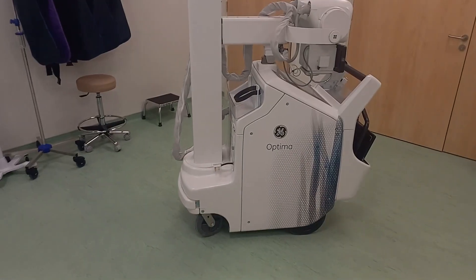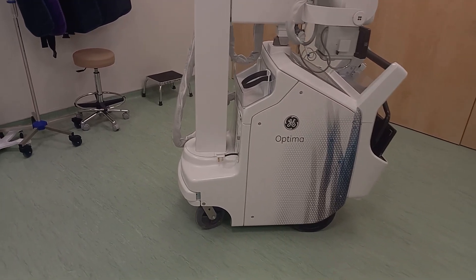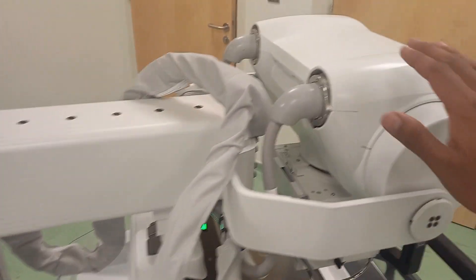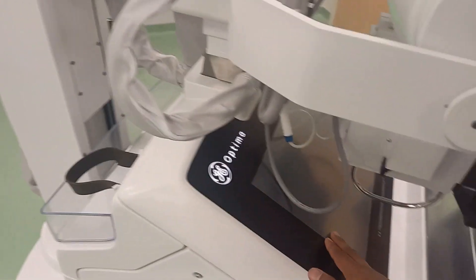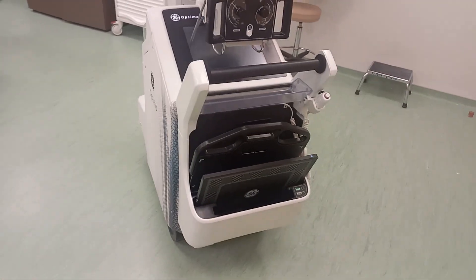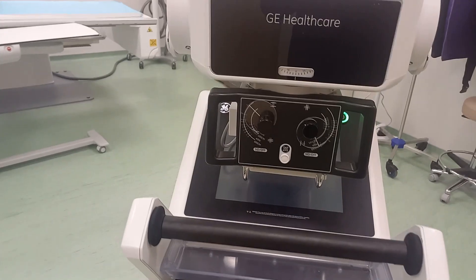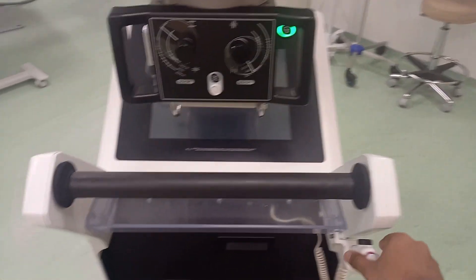I'm going to show you all the components now. You have the front wheel and back wheel — the front wheel is just to support you as you move around, and the back wheel is the one that is motorized. Here you have your tube, your collimator, your touchscreen to access all your applications. At the extreme back you can see the collimator, the drive handle, and your exposure hand switch.